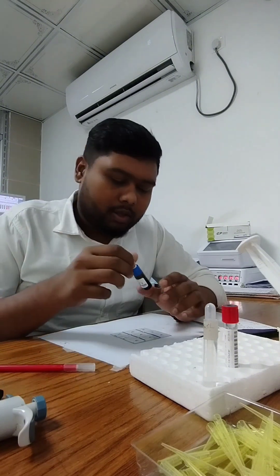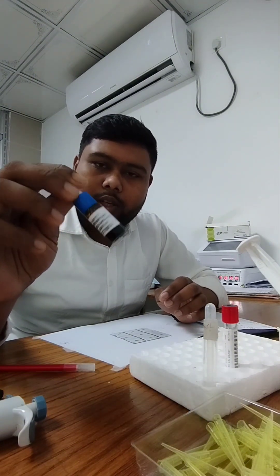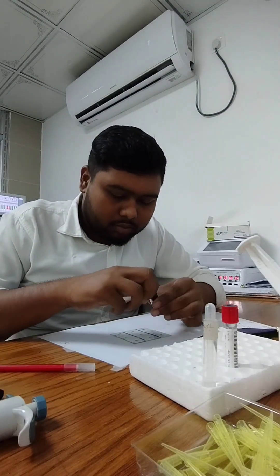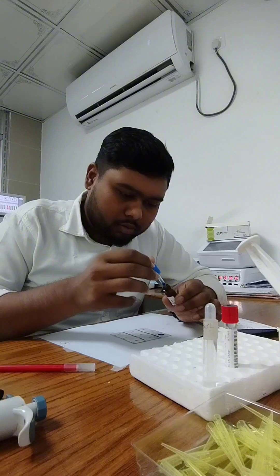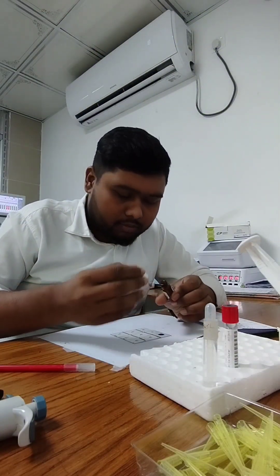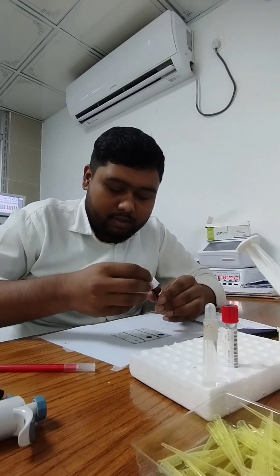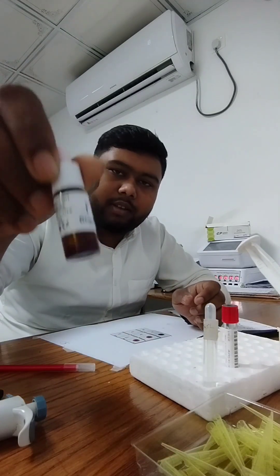Then this is placed in the air. We have Typhoid and Paratyphoid antigens — this is Paratyphoid A and this is Paratyphoid B.